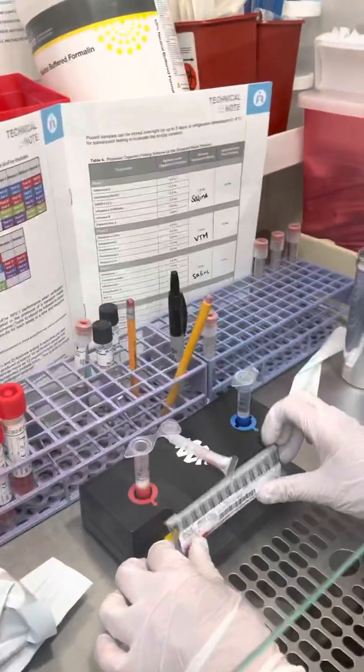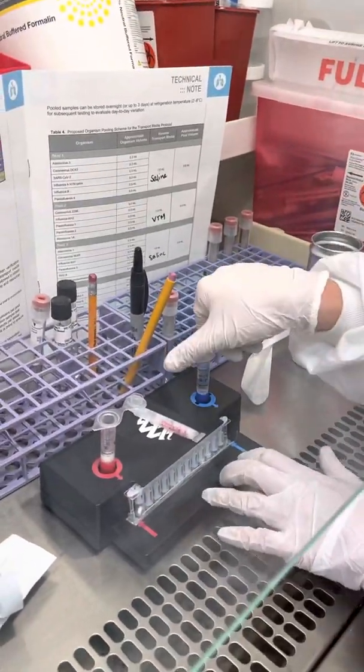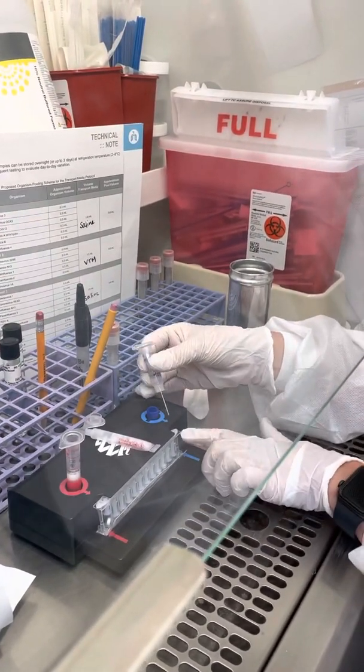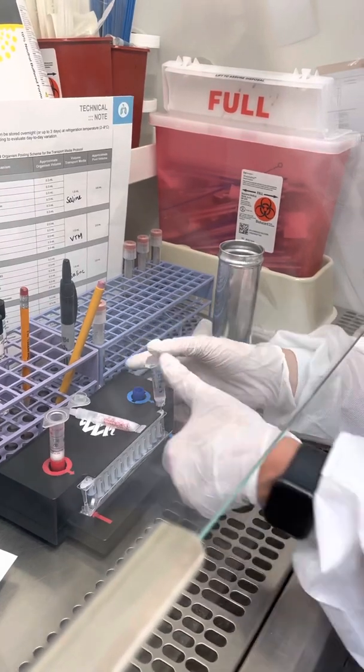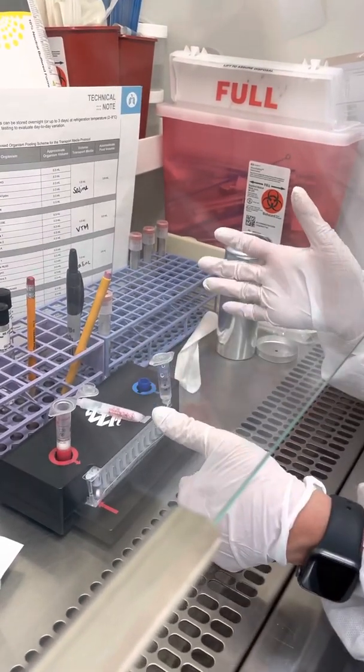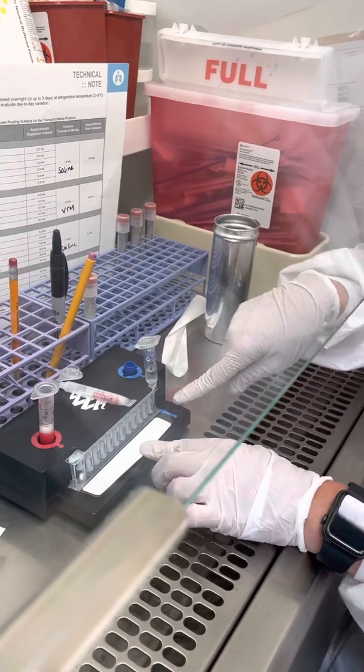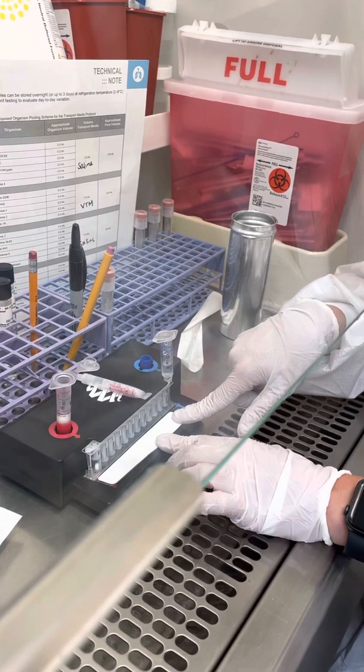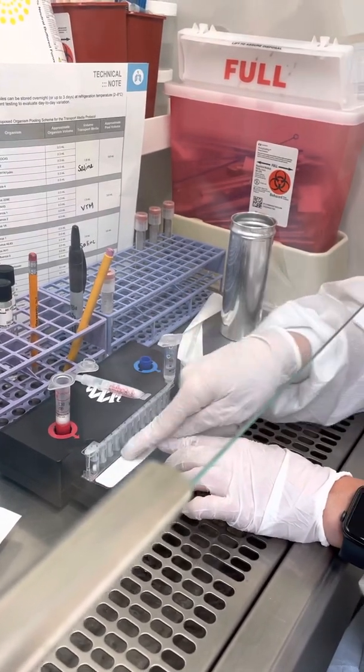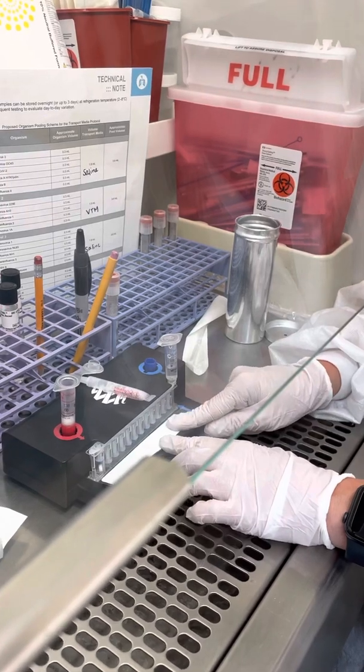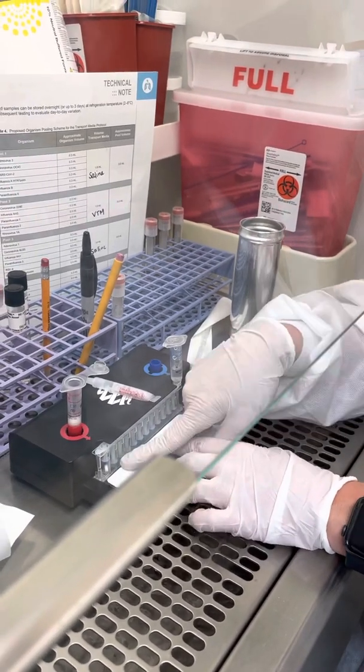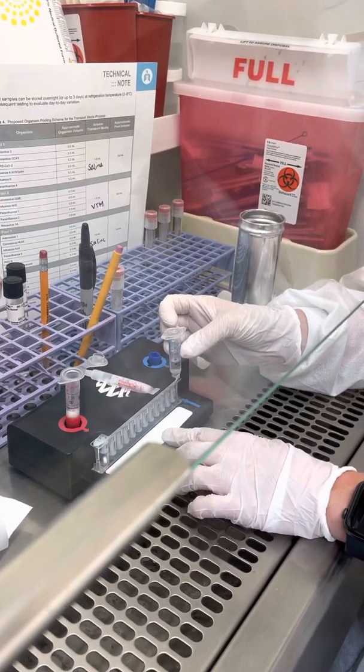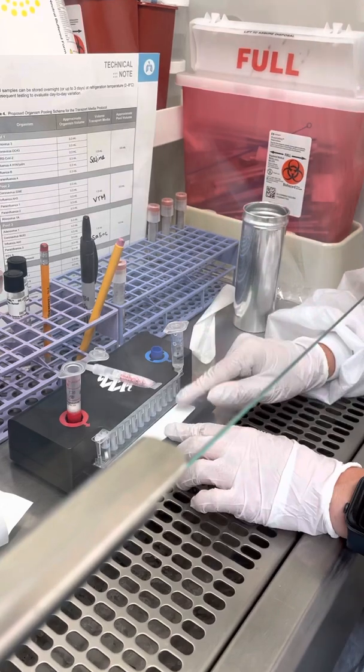You take your blue hydration solution vial. It has a needle on the end of it. There's a little hole here that it's pointing to. You're going to put it down and press down. Notice it draws it in, so now all of the wells are hydrated. You just need just one. If your pouch fails to hydrate, you'll notice that because it'll look not right. It also won't take the liquid in, it'll only take like a tiny bit. We do have a pouch credit system so you can get reimbursement for those.